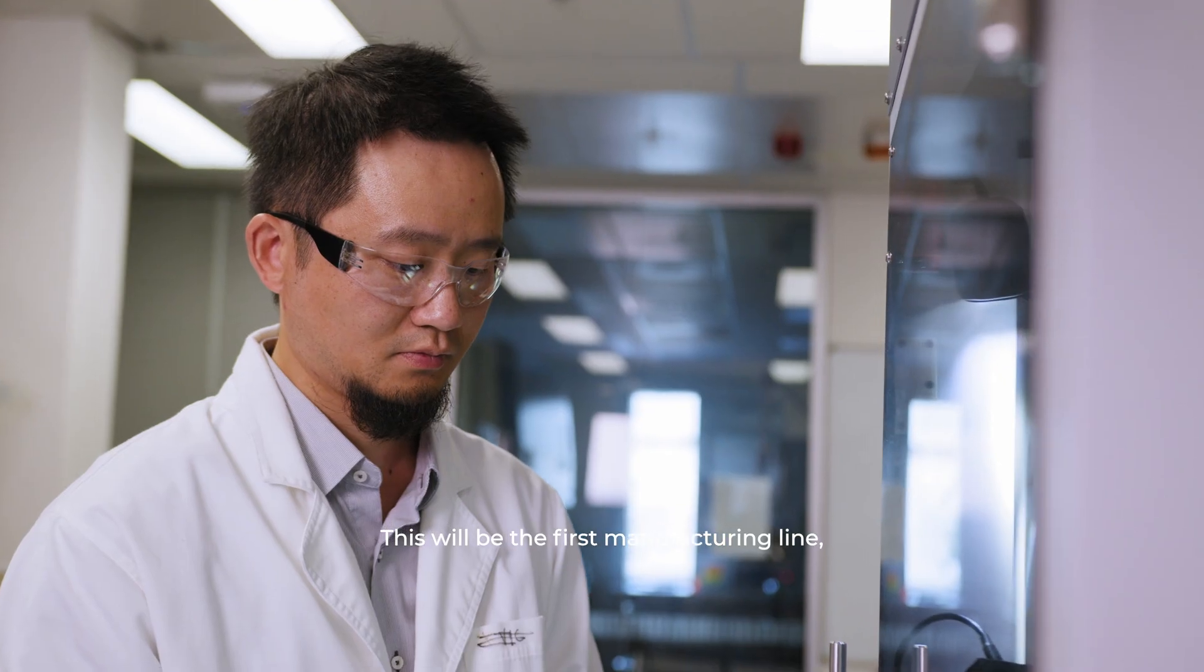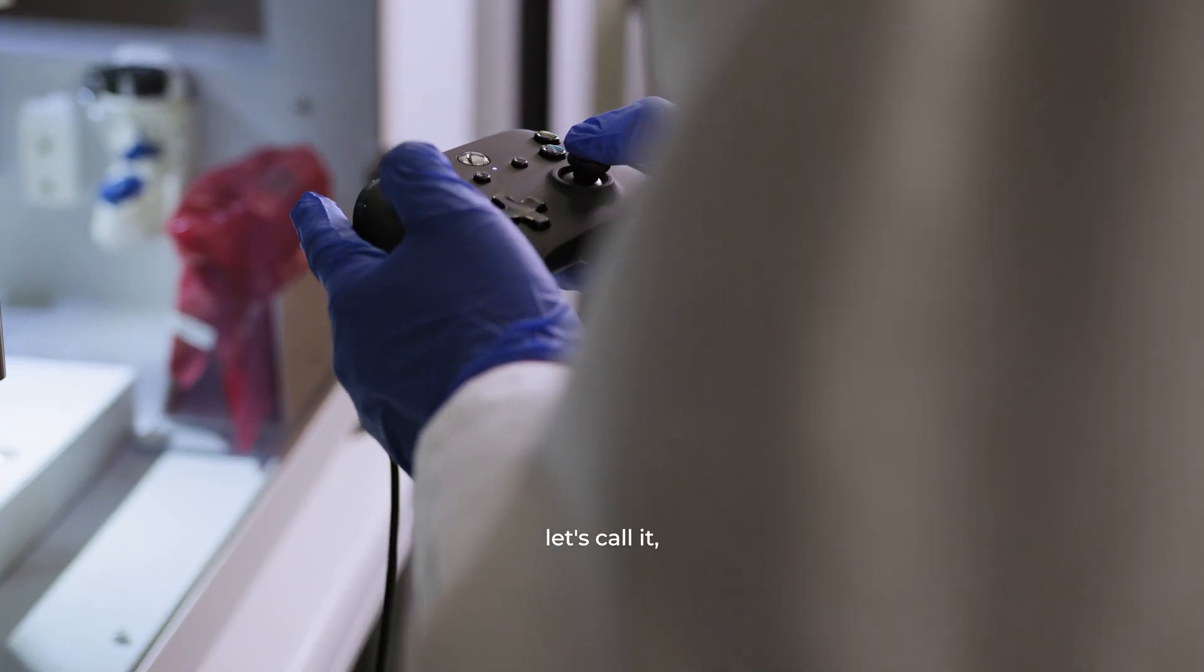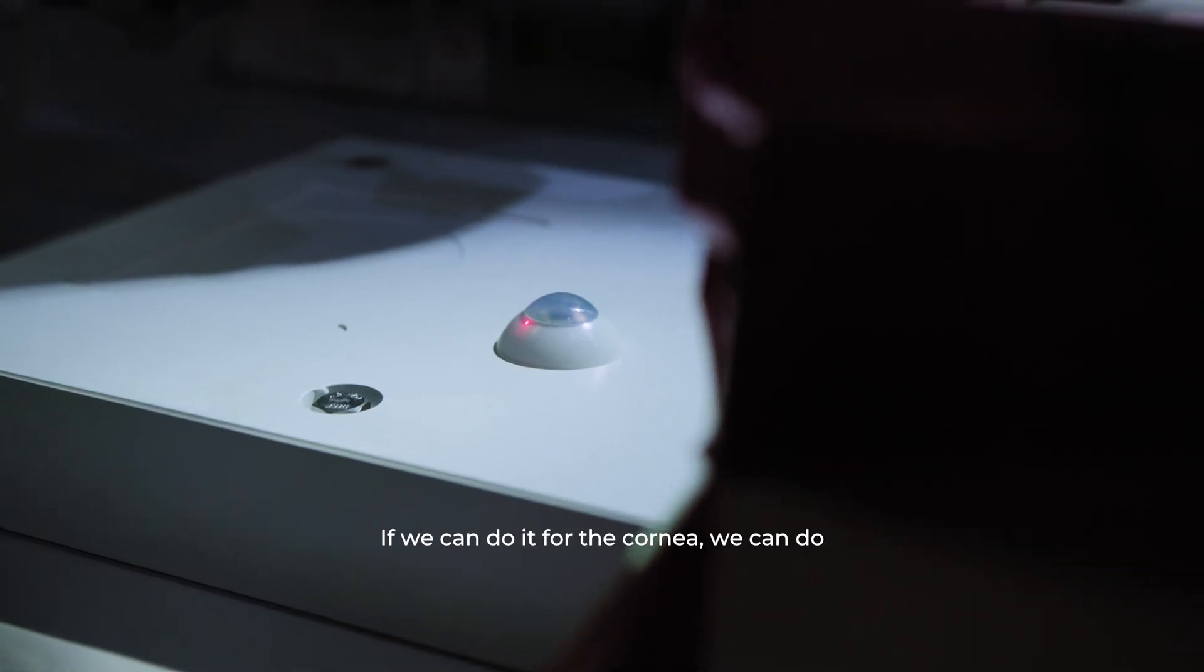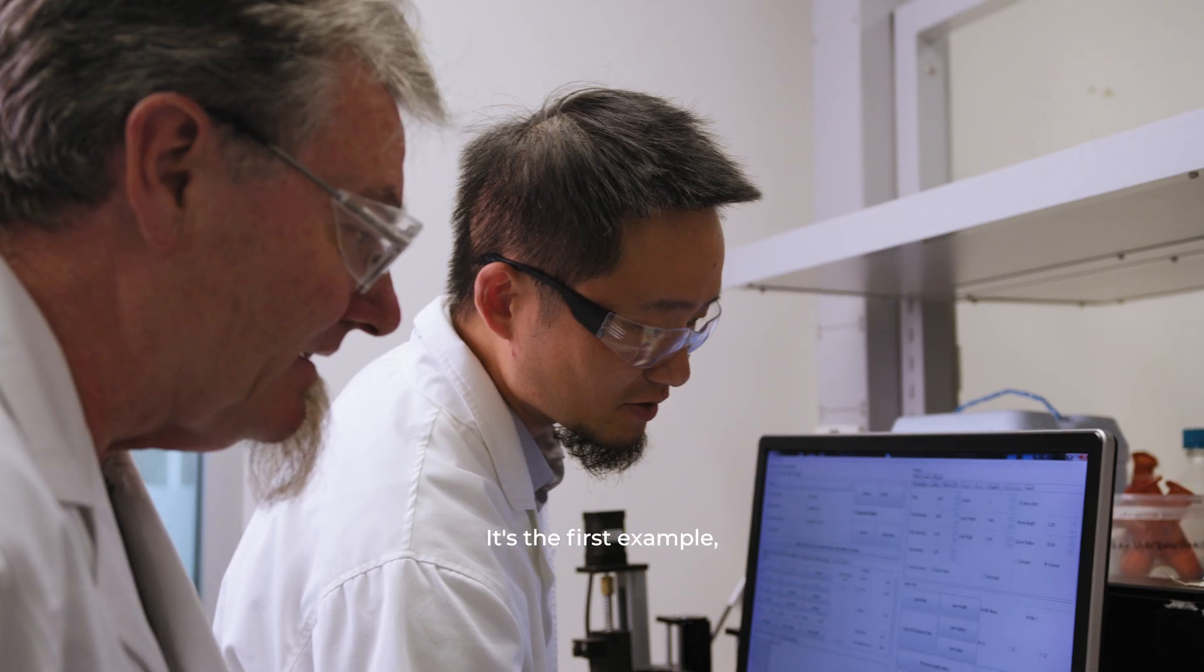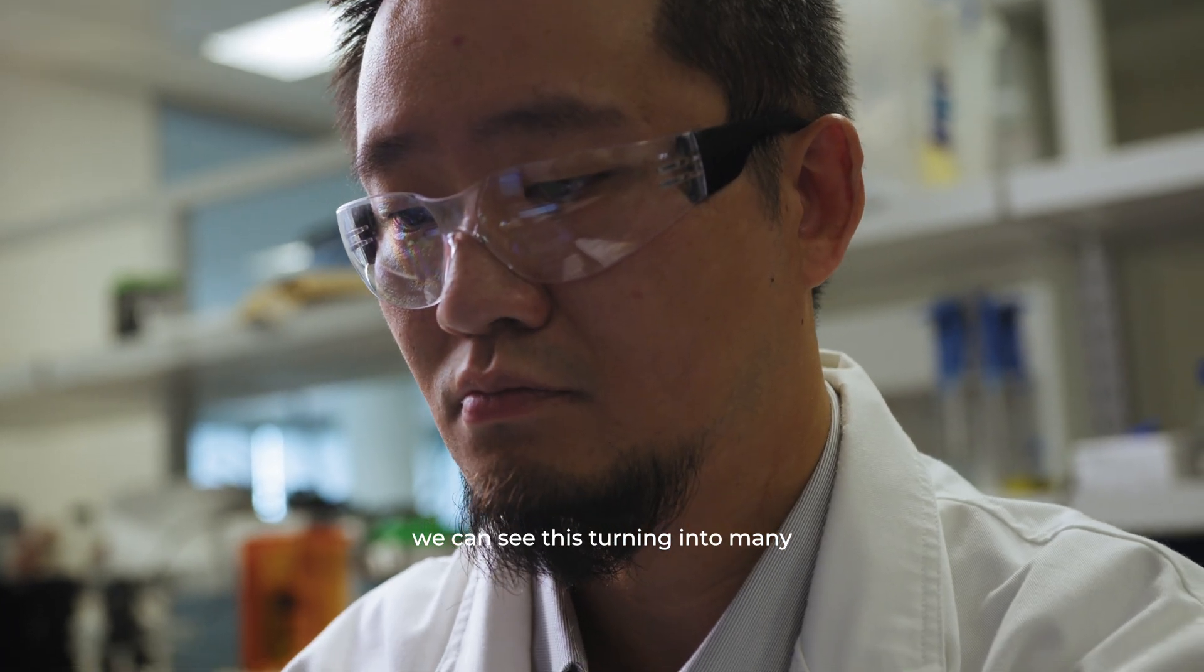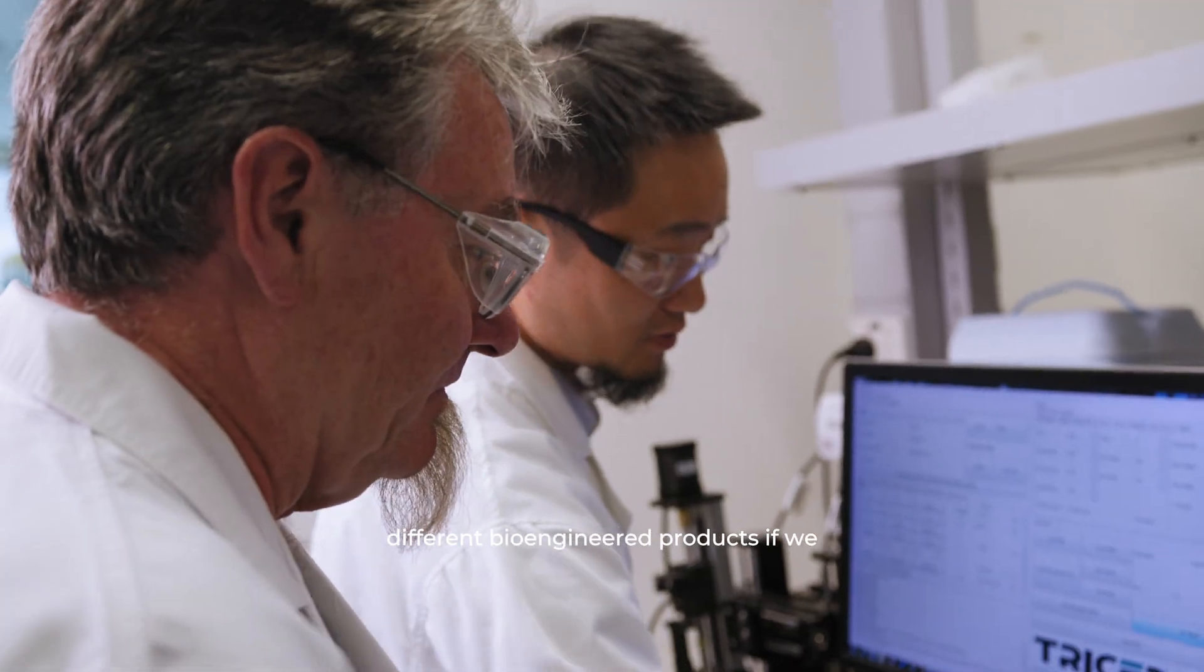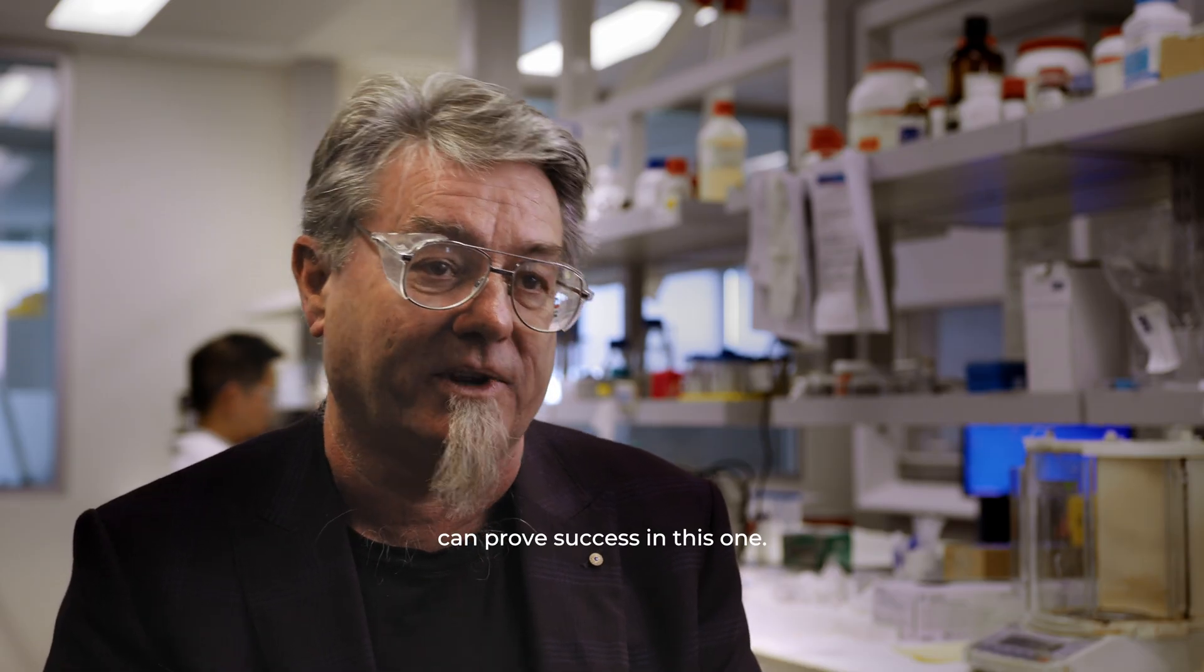This will be the first manufacturing line, let's call it, for a bioengineered product. If we can do it for the cornea we can do it for lots of things. It's the first example. We can see this turning into many different bioengineered products if we can prove success in this one.